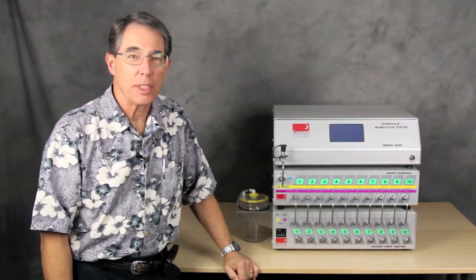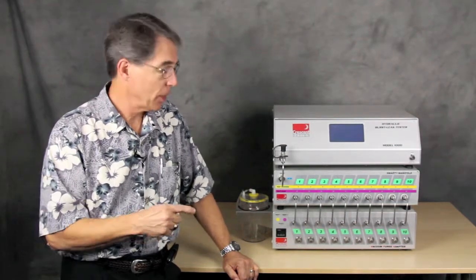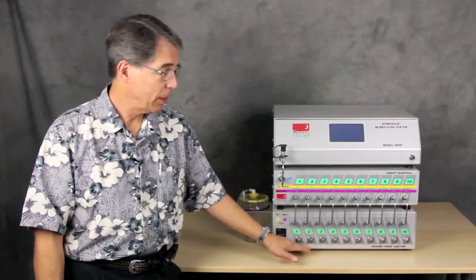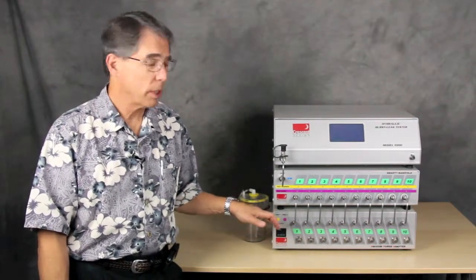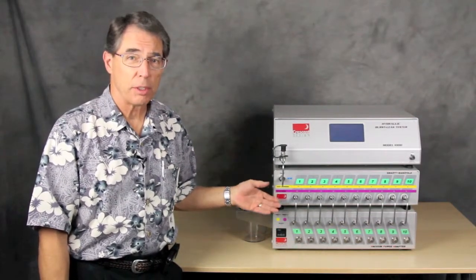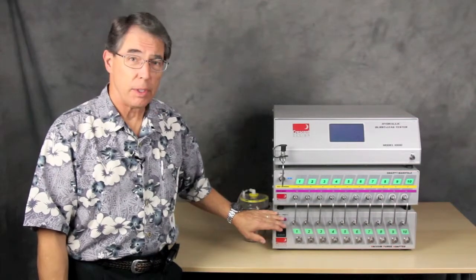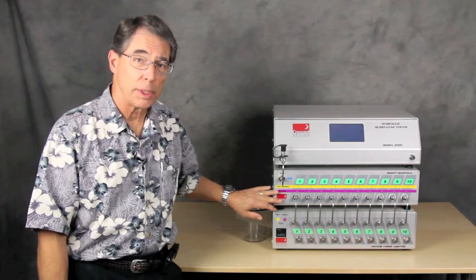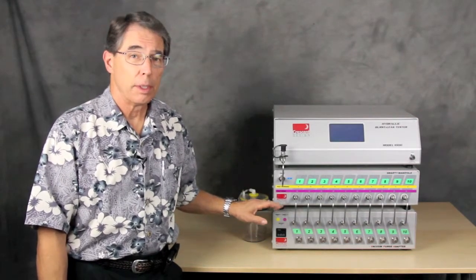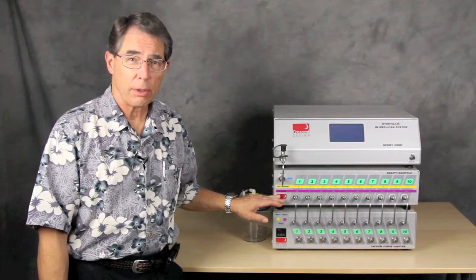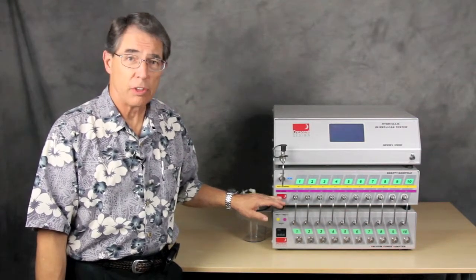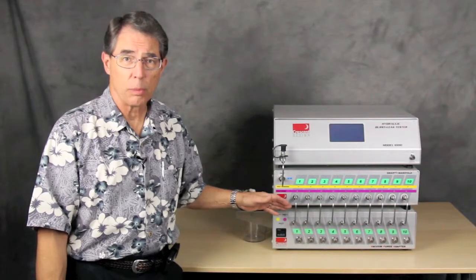Hello, my name is Steve Royce with Crescent Design and I'm here to introduce our vacuum purge adapter, the VPA, and give you a short tour and a demonstration of how it works. With the VPA used in conjunction with the HBLT and the Smart Manifold, it completely automates the process of preparing the catheter or product, whichever product you may have to test, and testing them either in sequence or in parallel.